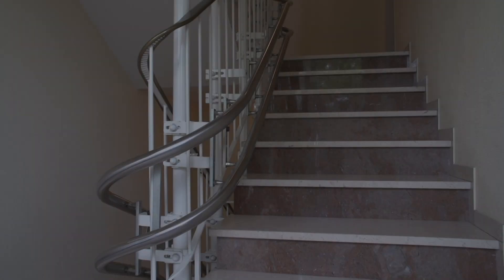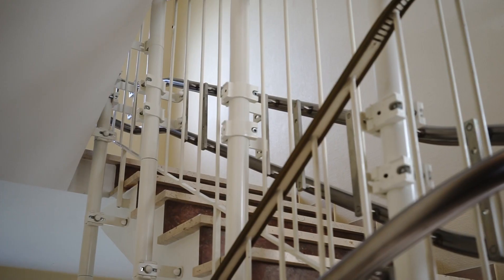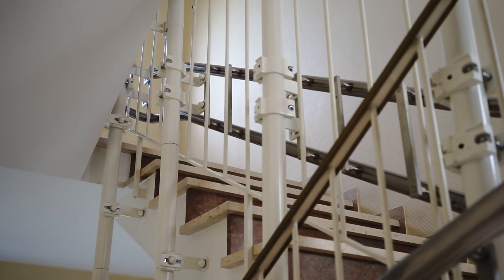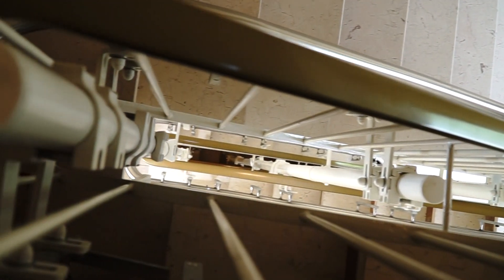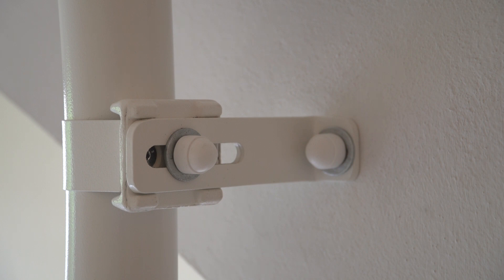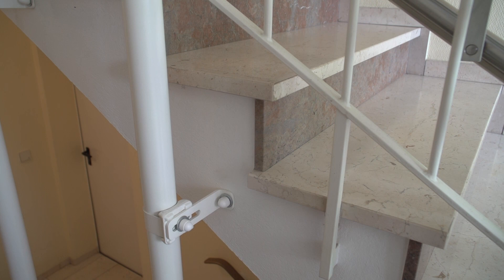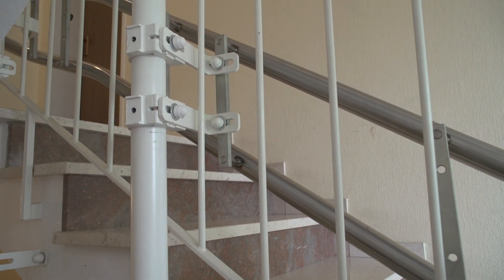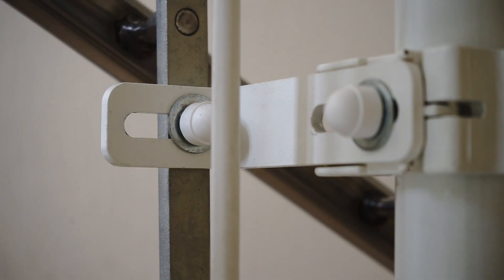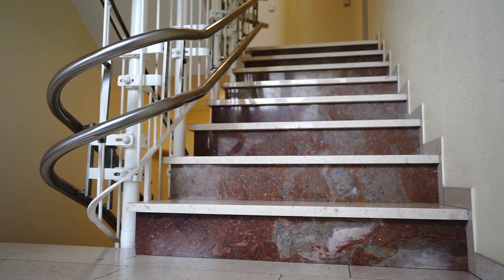Hero Lift mounting option two: floor supports. In apartment buildings, the best option is often to set up floor supports on the ground floor between the two sides of the staircase in the stairwell. The supports are secured to the side of the staircase — the stair stringer — which gives them stability. This approach allows negotiating very narrow curves around the handrail and maximizing walkable staircase space.